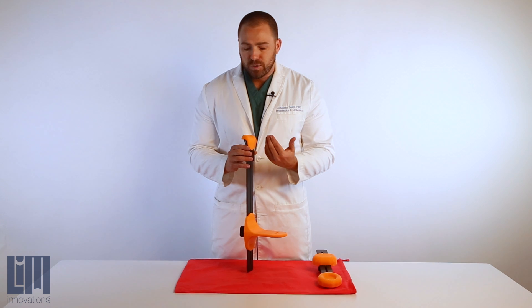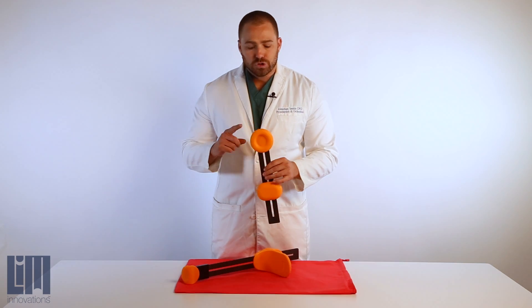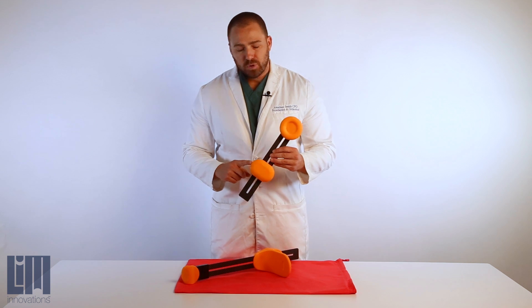In addition, this will also serve a function in creating a really high quality impression when we lay down a plaster or fiberglass mold. Second, we have what we call our trochanter donut and our femoral paddle.